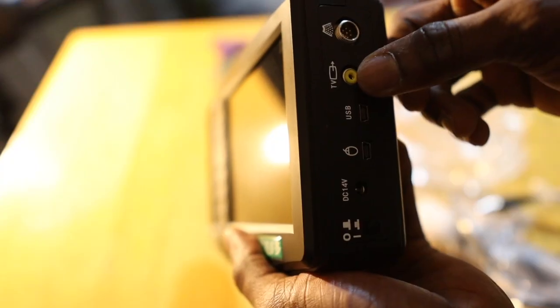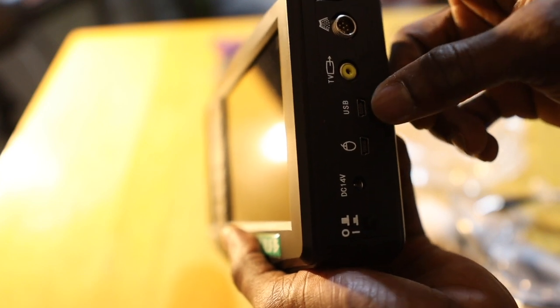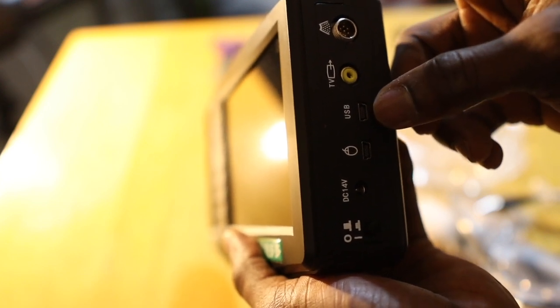When you are done collecting data, you can connect the device to a printer and print out the results, or upload the images onto a PC using the USB port. You should also know that the device can still consume power even when it is off, so if you prefer, you can remove the battery and store it separately from the device until you are ready to reuse it. This covers the theoretical aspect of how this device works and how important it will be for us at DemFarms.